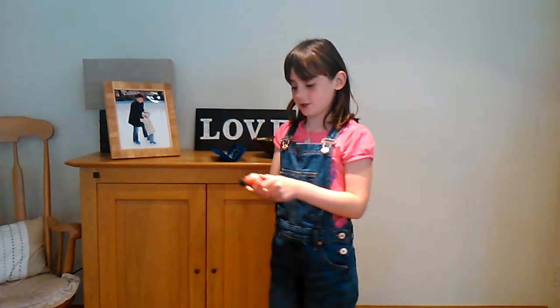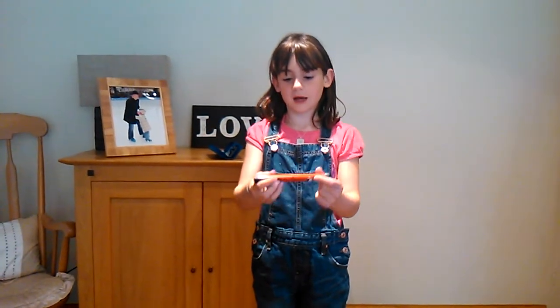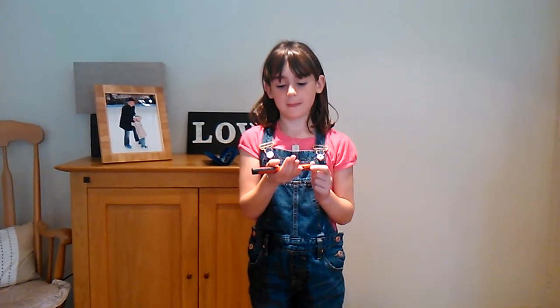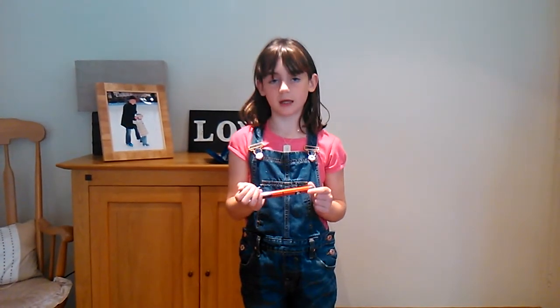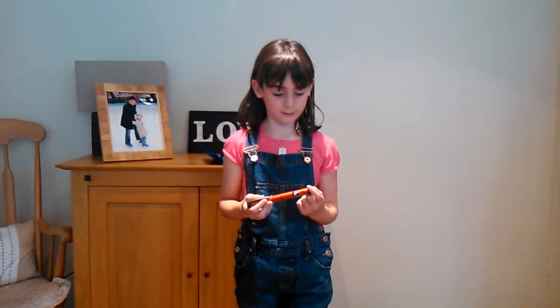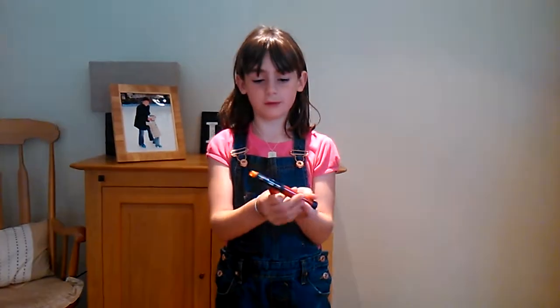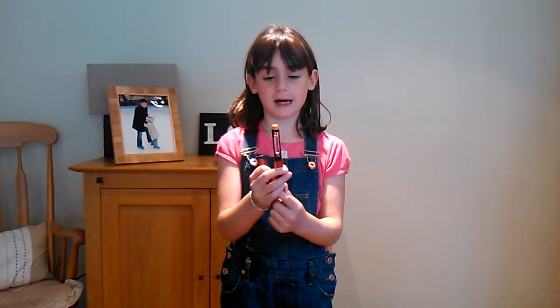So I've got my injection with me and I've got a red pen. You might get a different one because I'm not sure why, but yeah, here's my one. So I take the lid off and then it should be there.